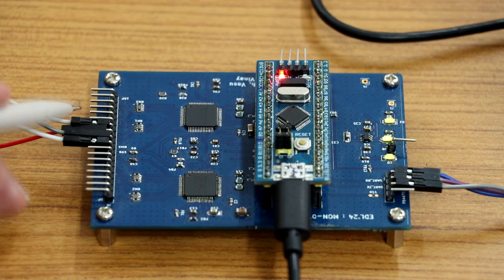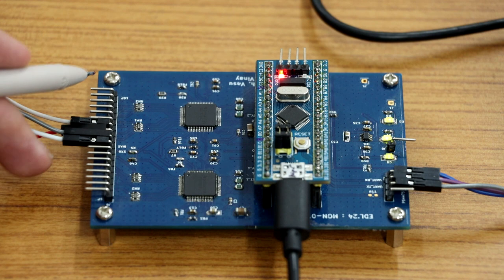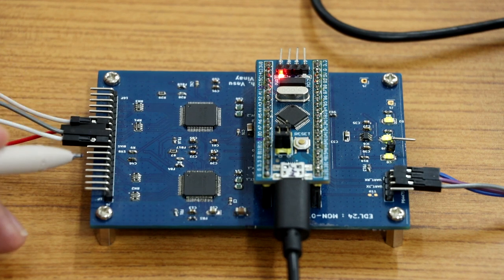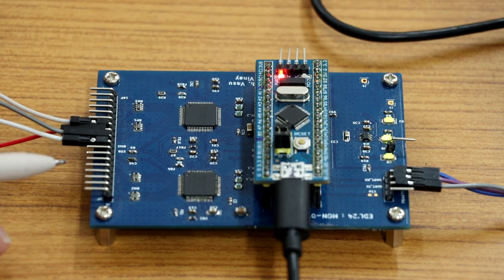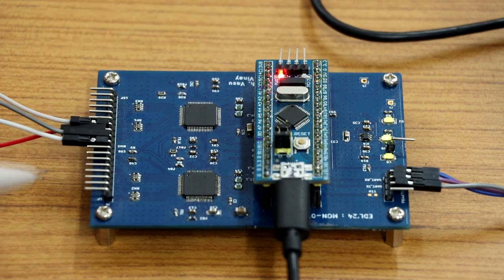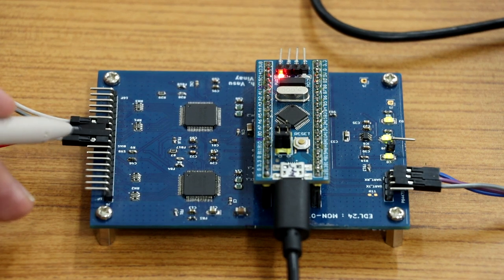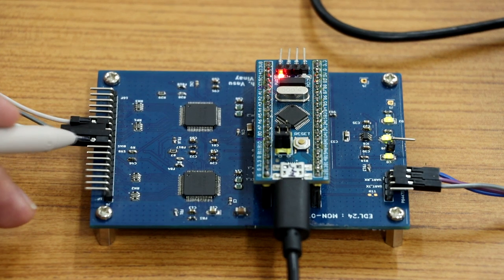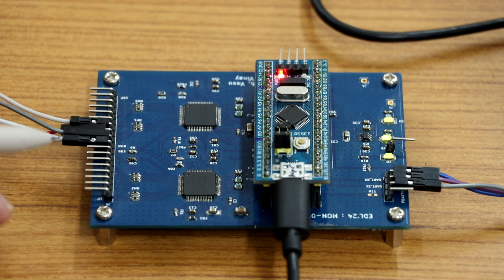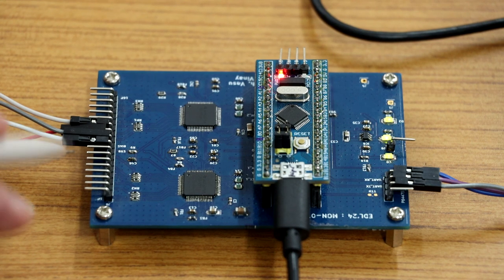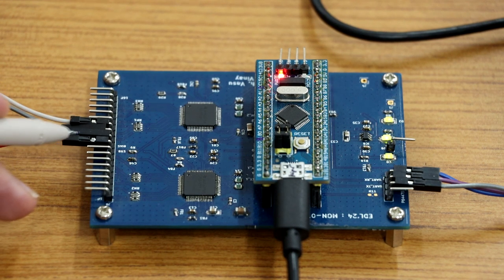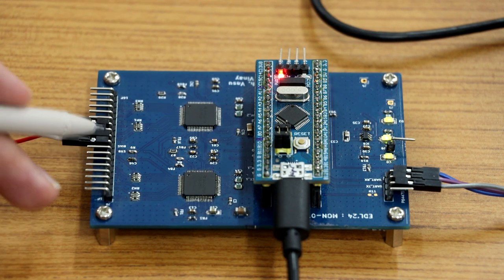These are our input pins. There are a total of 16 pins for the 16-channel electrodes, and we have two pins for BIAS and SRB. These are the ground and reference for the electrode data.